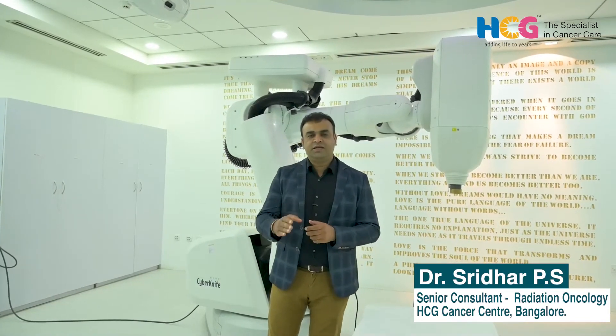Because of its precision and effective treatment, tumor control is better and the quality of life of the patient is very good — they tolerate treatment better. Stereotactic radiosurgery or SBRT is usually delivered in one, three, or five fractions, sometimes up to six or seven fractions. It can treat more than one area in different organs effectively. Those are the main advantages of CyberKnife.